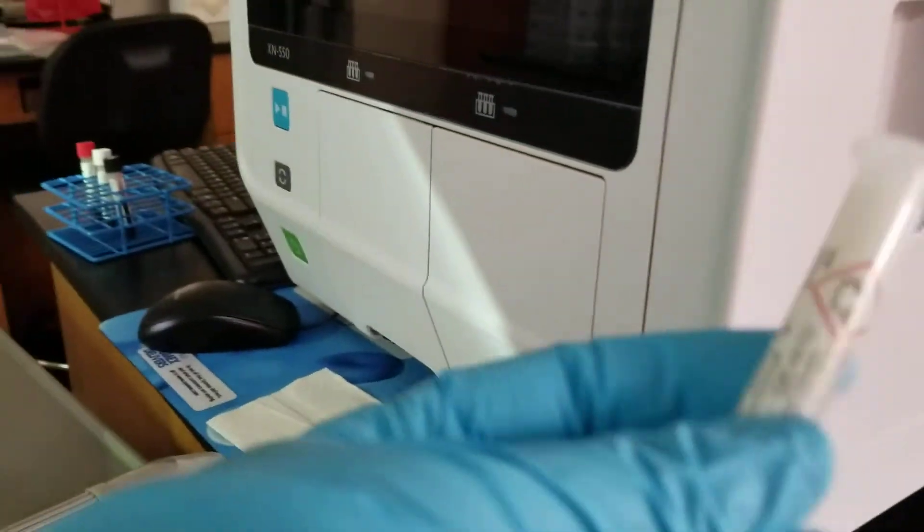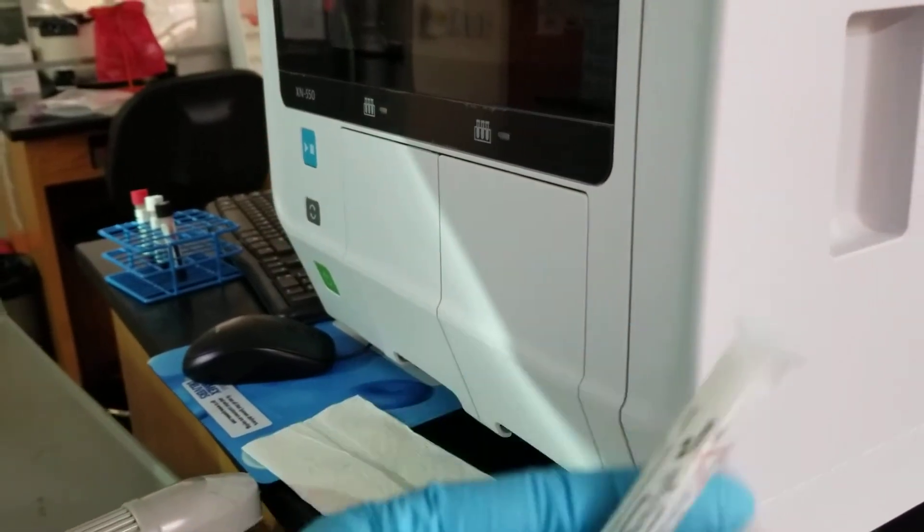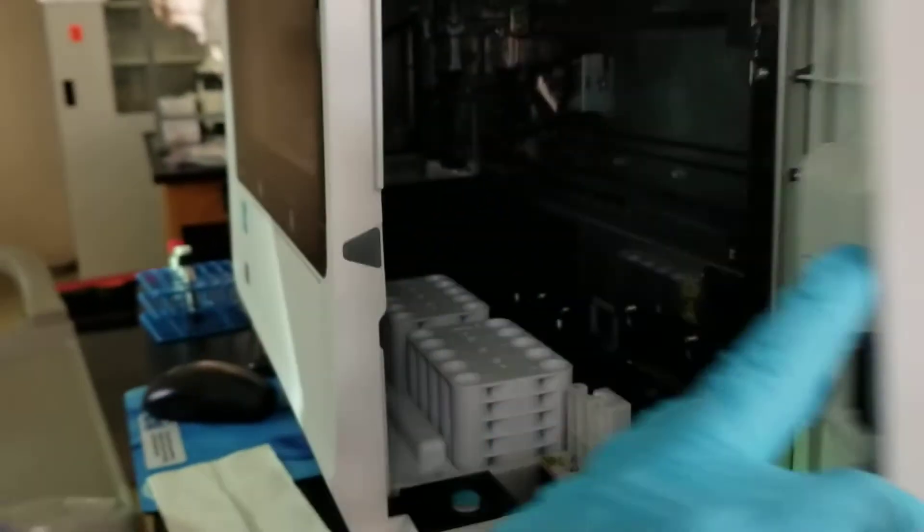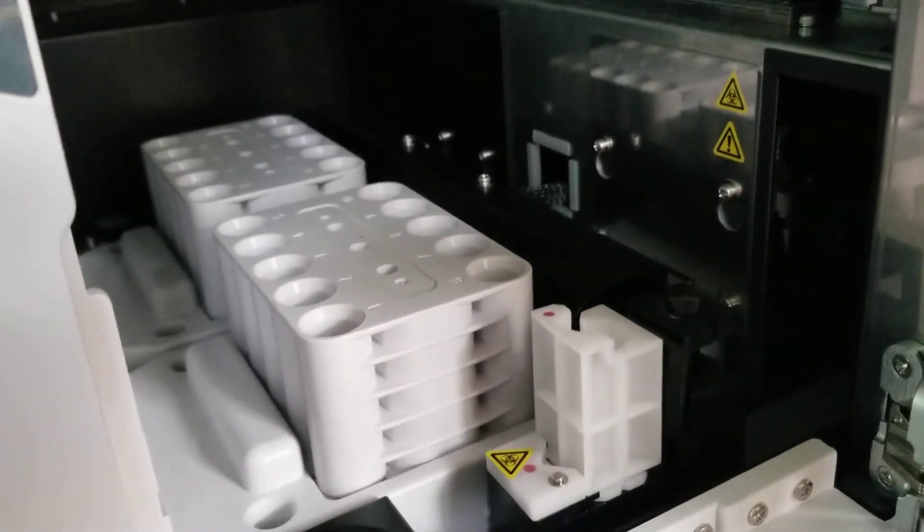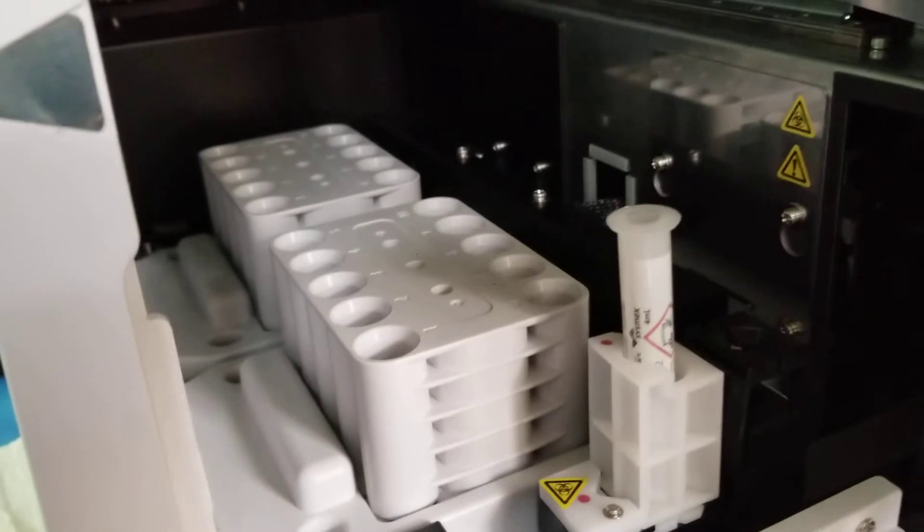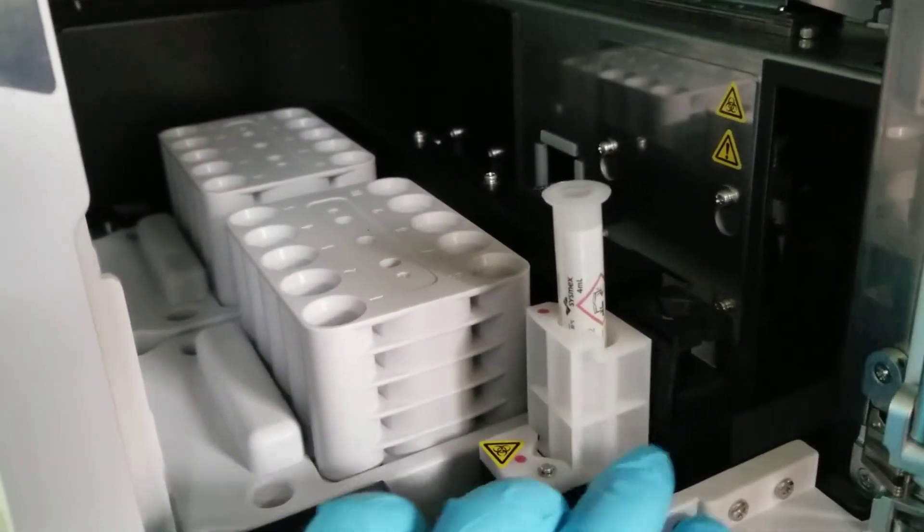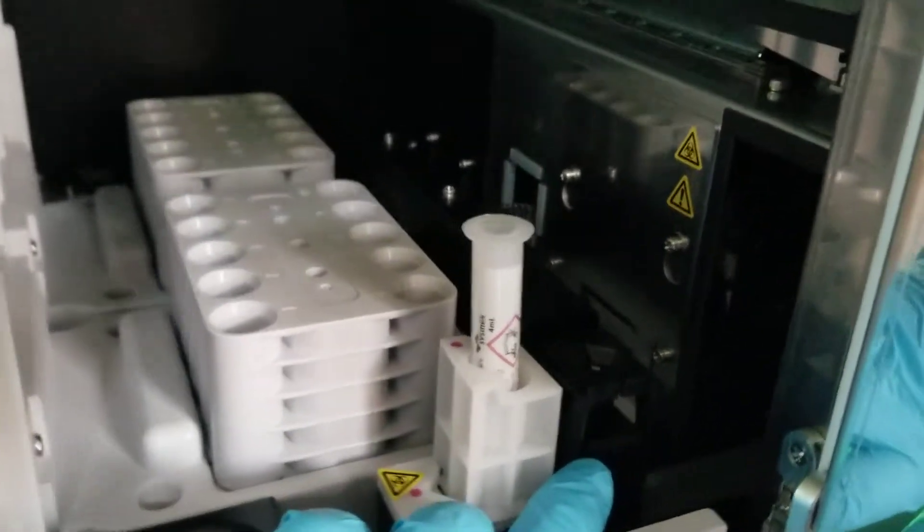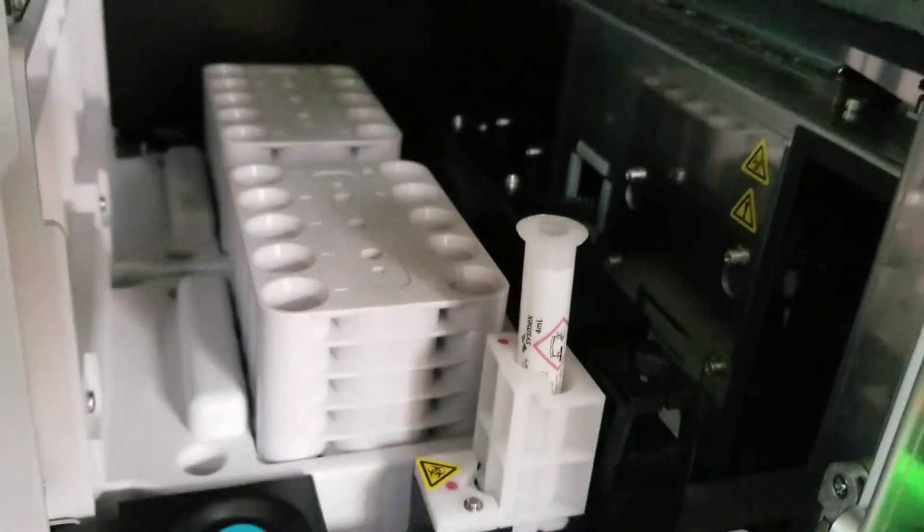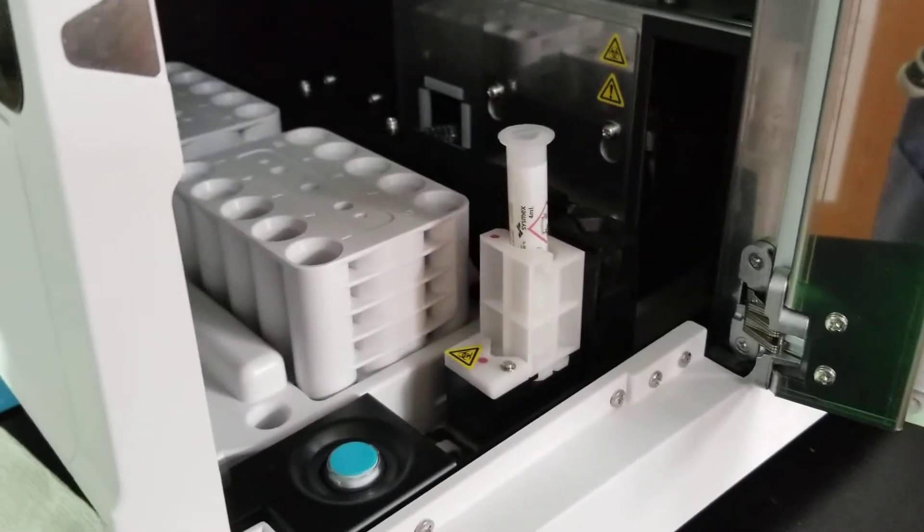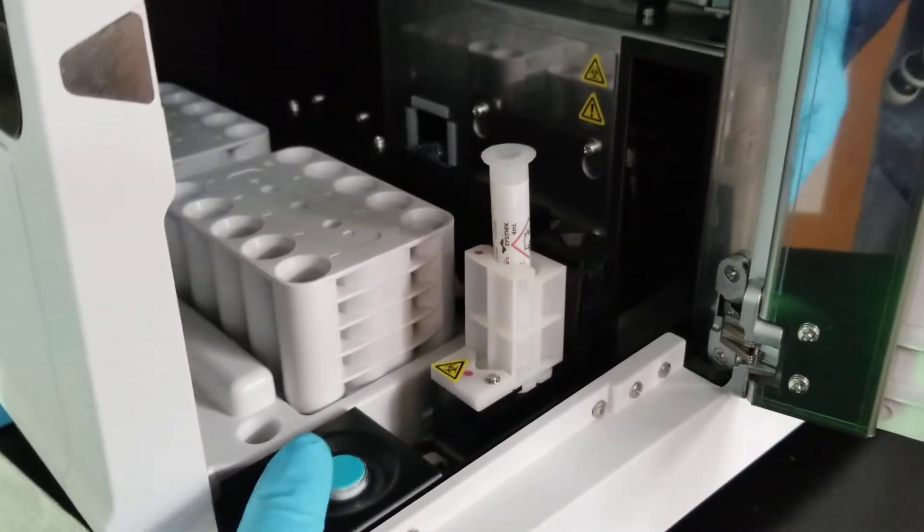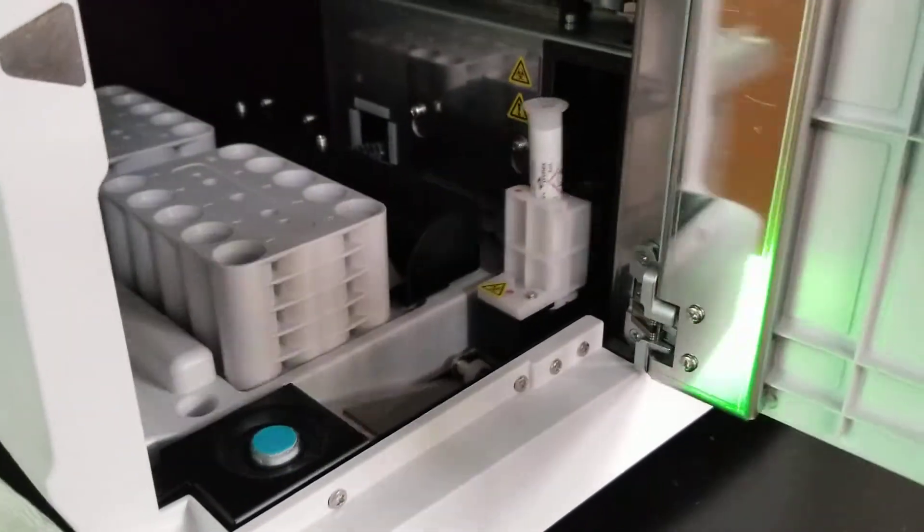I have my cell clean auto here. It's got a barcode. Open it up here. The white is the normal sampler that you're going to use. If we had a bullet, like a baby unit, you can barely see it, but there's this black area here. It's an adapter. And so what we're going to do is press that manual button here so that it gets started. It'll take it in.